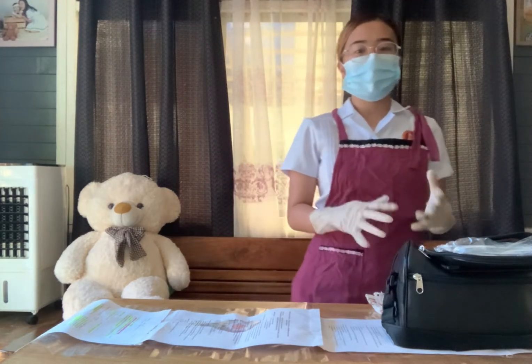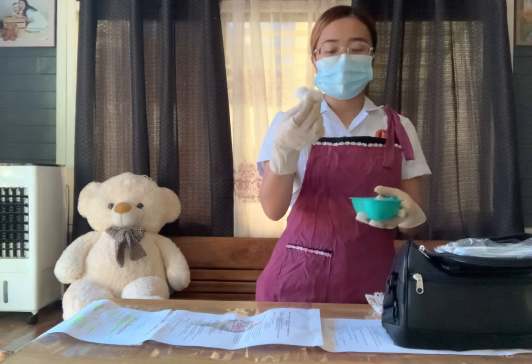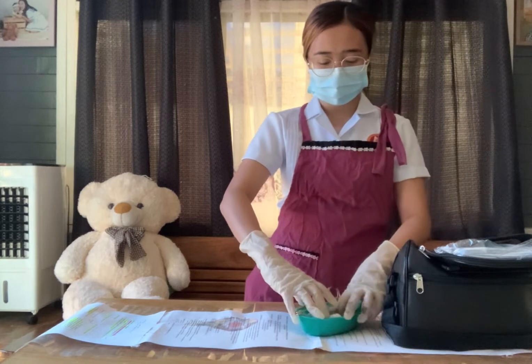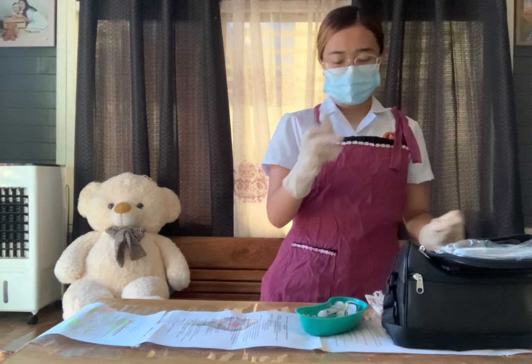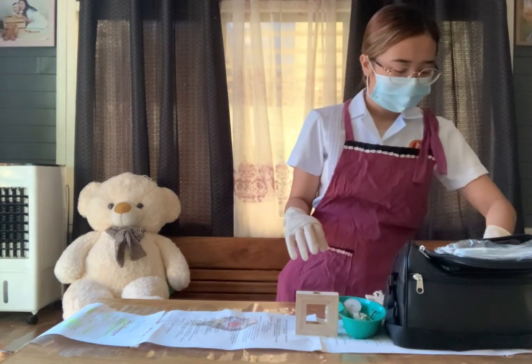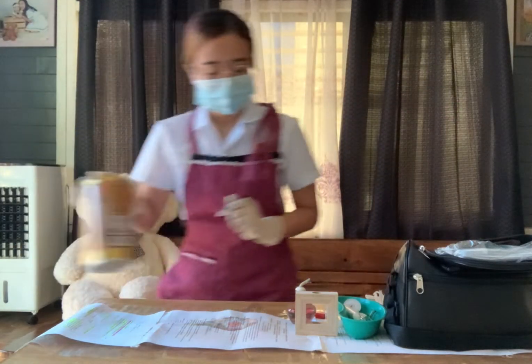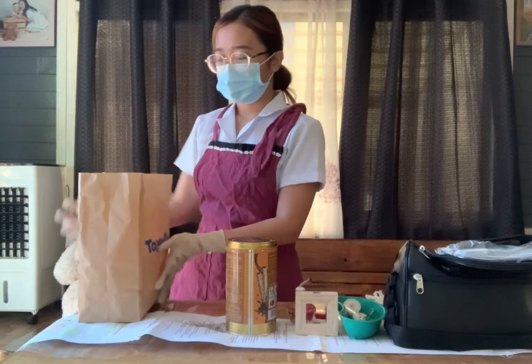After that, take the other materials: the kidney basin with three cotton balls with alcohol, the dropper, the test tube, and the test tube holder. Make sure to put them inside the kidney basin. We also need to place the acetic acid near the kidney basin, the test tube rack, the alcohol lamp, and a match or lighter. Place the waste receptacle at one side of the workplace.